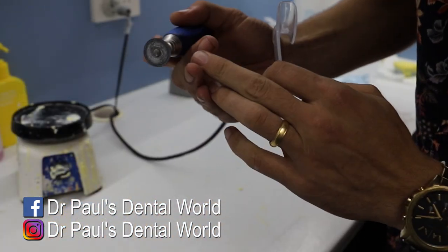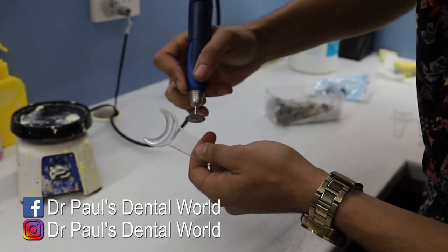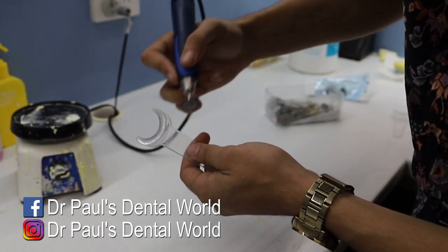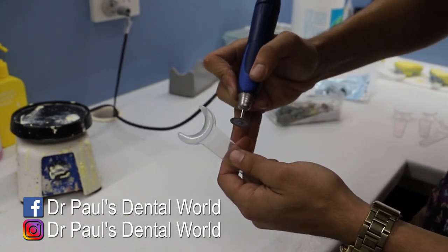This way it actually keeps the bits of plastic out of the image. The instrument I'm going to be using is this disc here. At high speed it cuts this plastic really really well. I'm going to be going on a bit of an angle because the less plastic that's in the actual photo or on the retractor itself, the better. So we're going to do this one first.